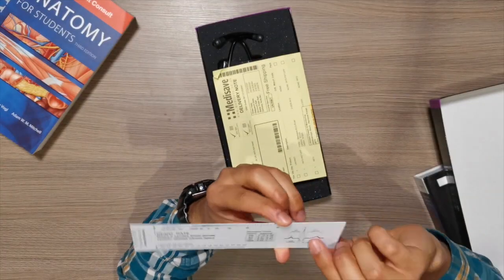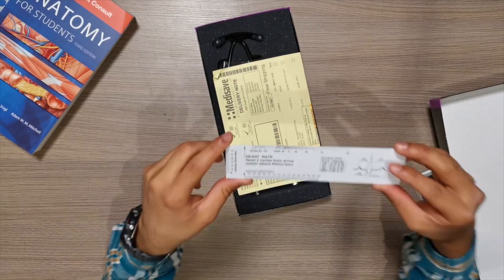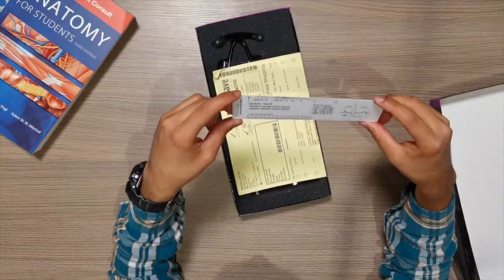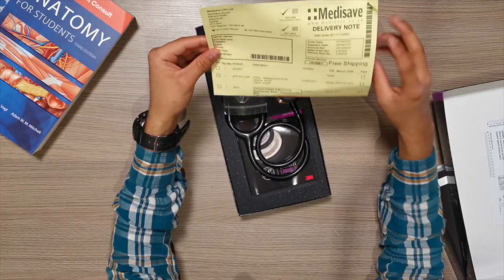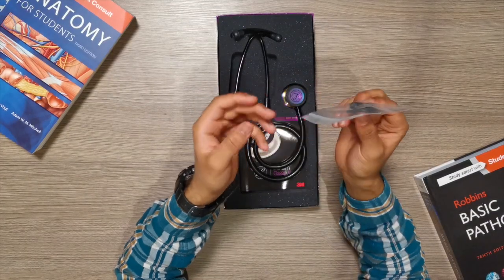This is cool — it's an ECG scale. It's got the different intervals and complexes and the actual different rulings, so you can actually measure the individual grids on the ECG, which is pretty cool. This will definitely be super handy when I'm going through ECGs.